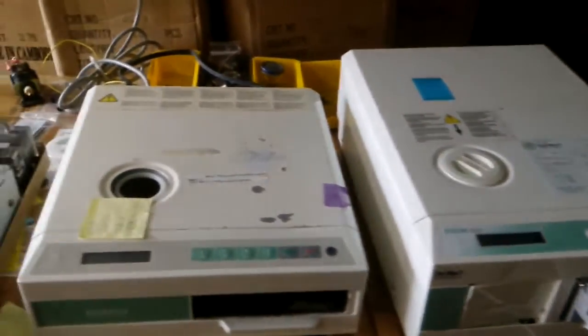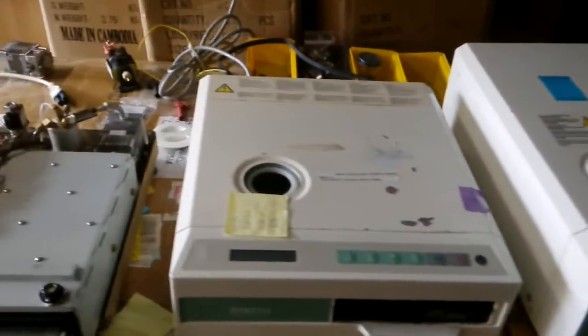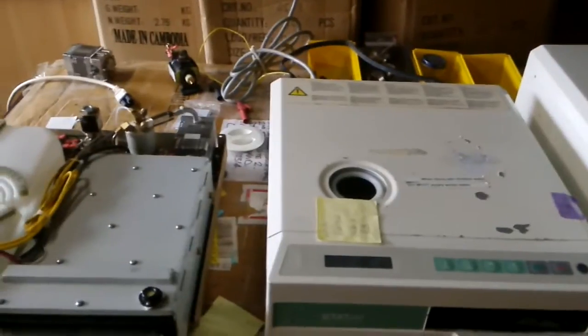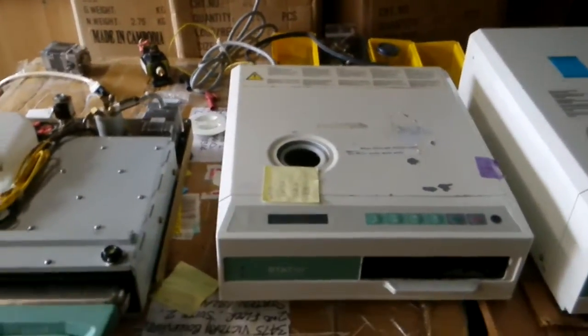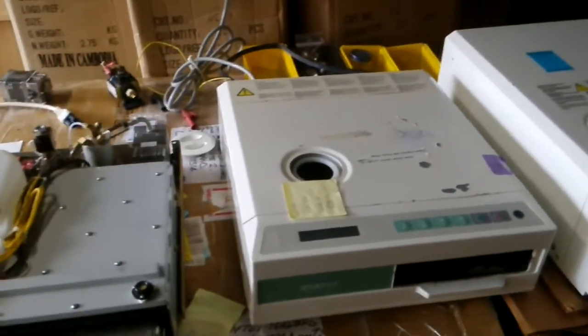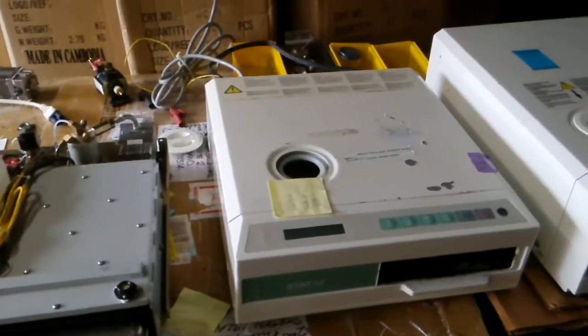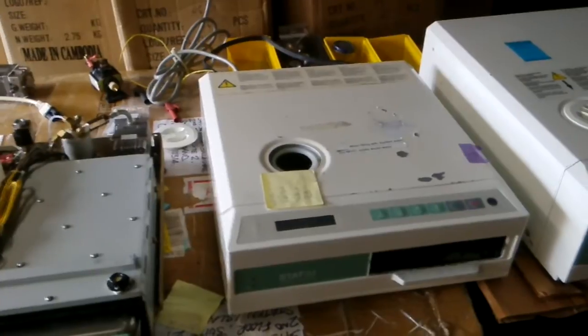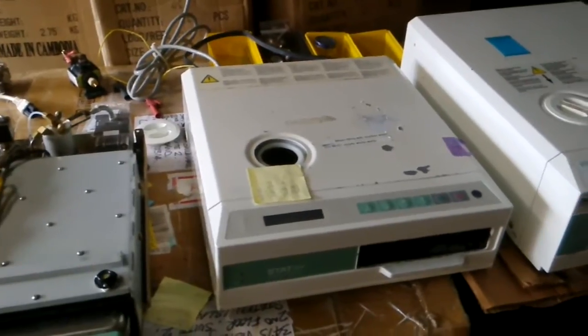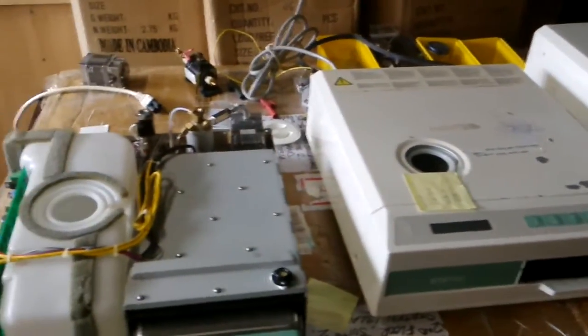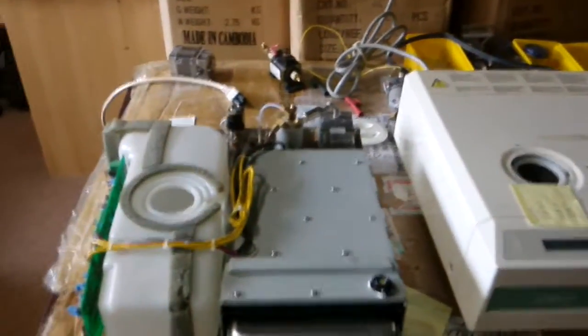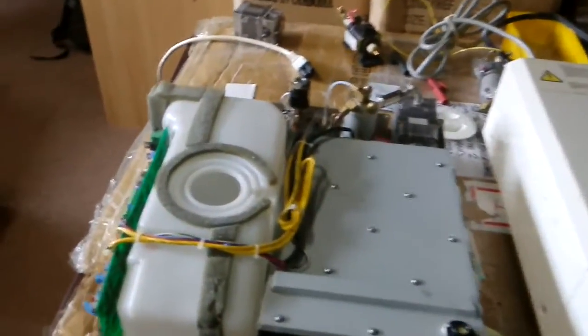In general, both machines are very similar. The inside and the idea is the same. If you check the service menu, there's just one menu for both machines. Let's use this open box with the cover already open.